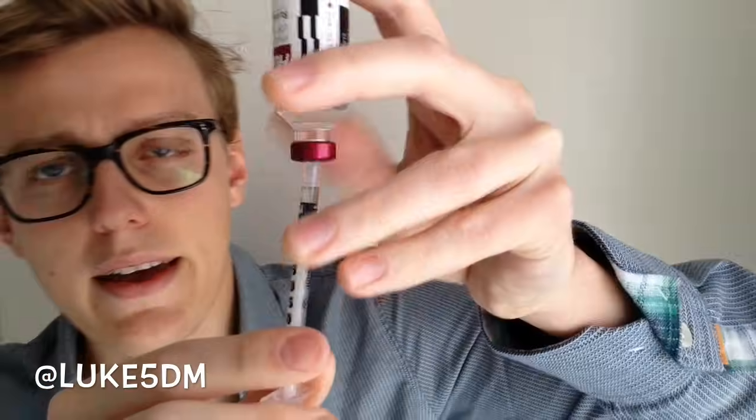And now you end up with 5 units and without air bubbles. That's the way you get no bubbles. The secret really is to pull it down fast, then go back up, and while you're going back up, adjust the dose to what you want to end up with. And that's it — it's that simple.